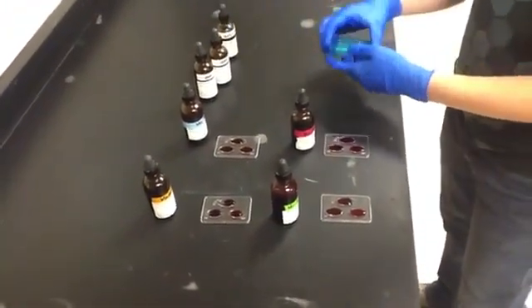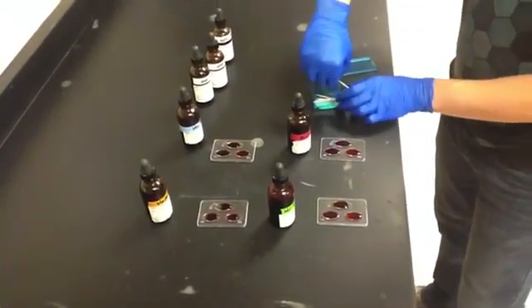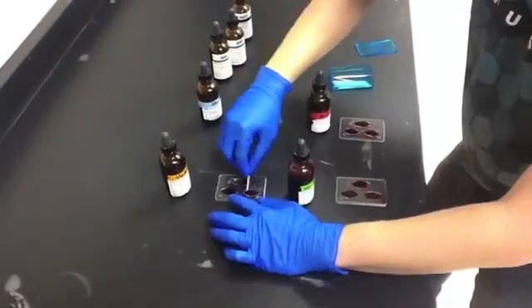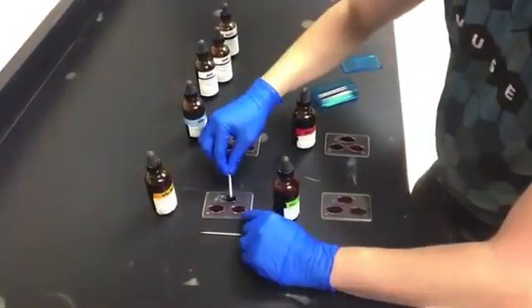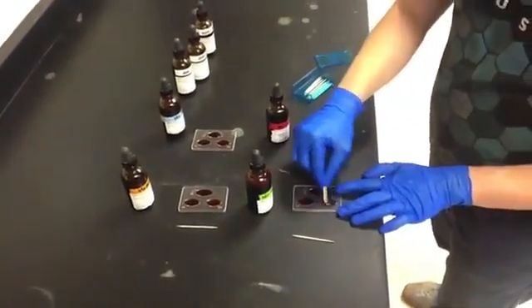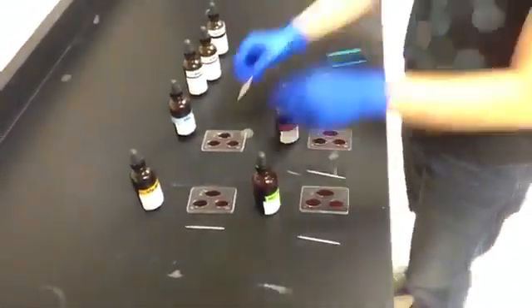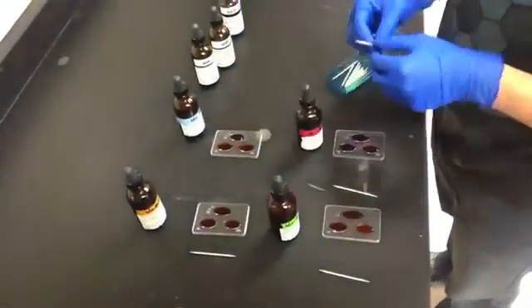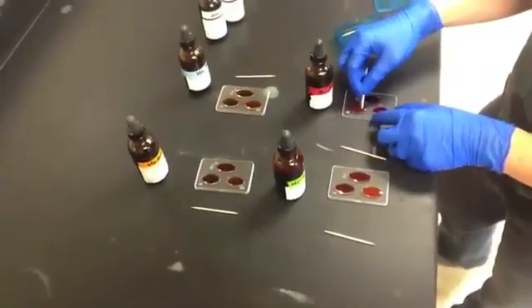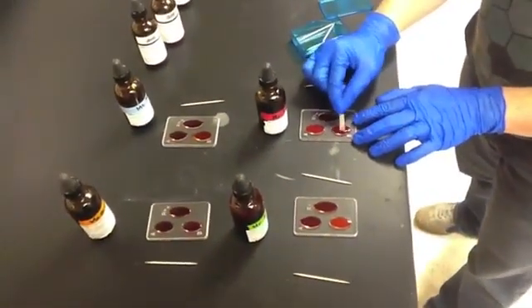Once the antibodies have been added to the appropriate wells, a toothpick will be used in each well to mix the blood and antibody. Should the individual have a specific antigen that that antibody targets, we should observe agglutination occurring in that particular well. Agglutination is denoted by either a color change or the appearance of particulates or clumps inside the well containing the blood and antibody mixture.